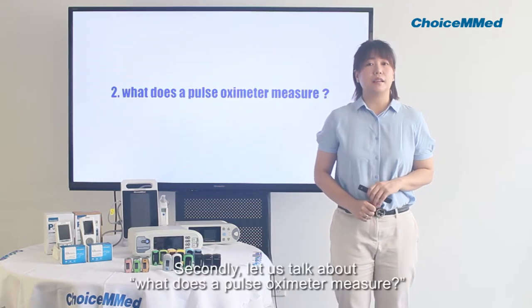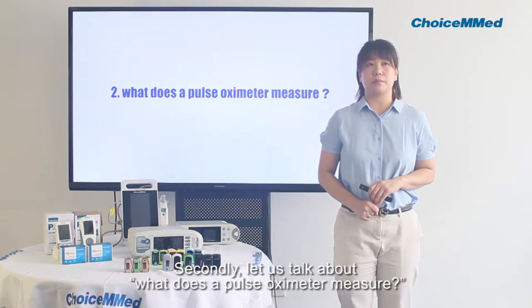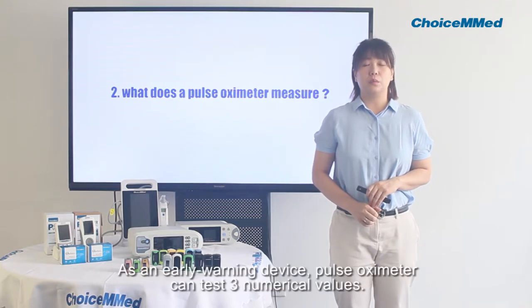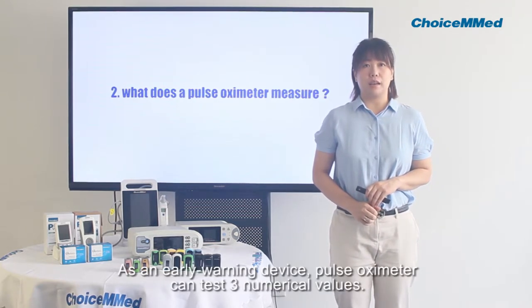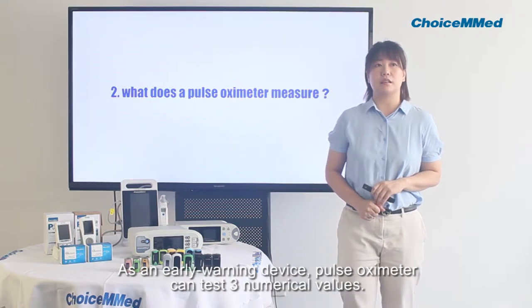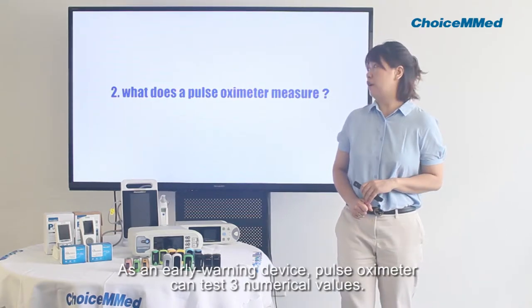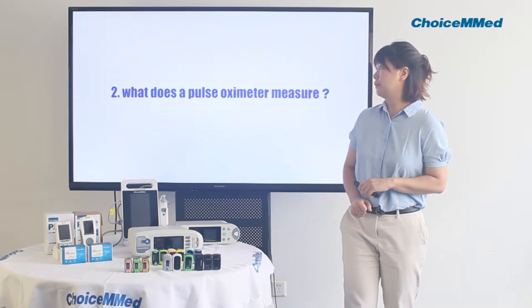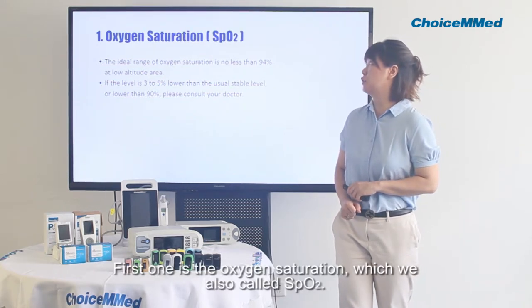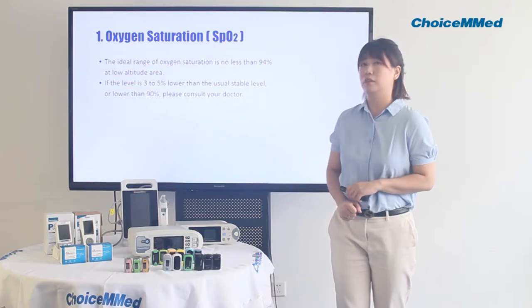Secondly, let's talk about what a pulse oximeter measures. As an early warning device, a pulse oximeter can measure three main numerical values. The first one is oxygen saturation, which we also call SpO2.